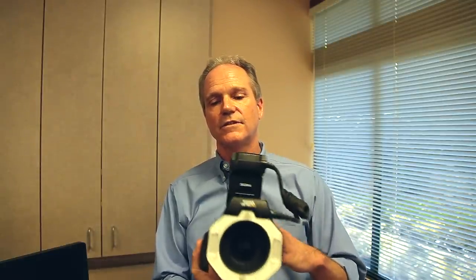First I'd like to start off with what we use. I happen to use two different cameras. The first one is a Canon Rebel — it's a nice camera. I use this for the intraoral pictures. It has an intraoral lens and a ring flash. This particular setup you can get from photomed.net.